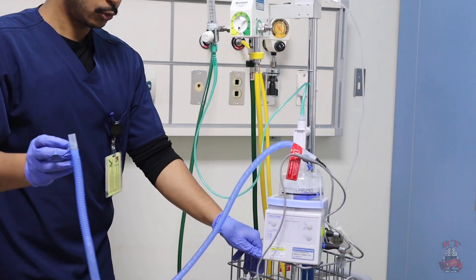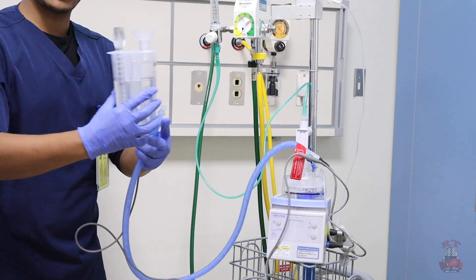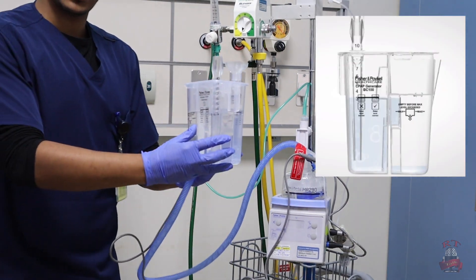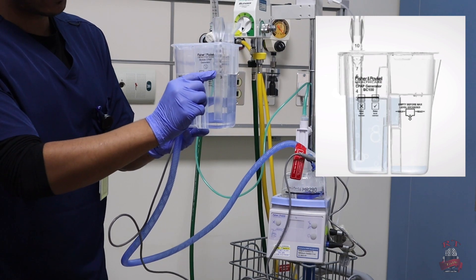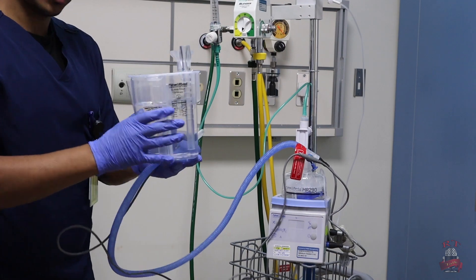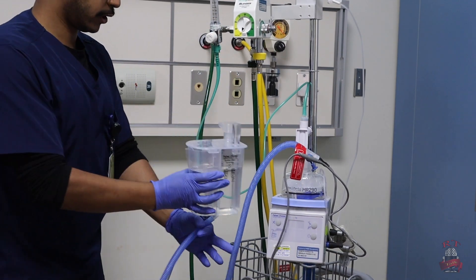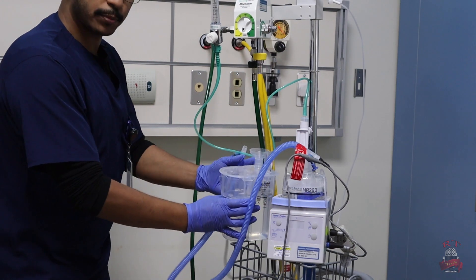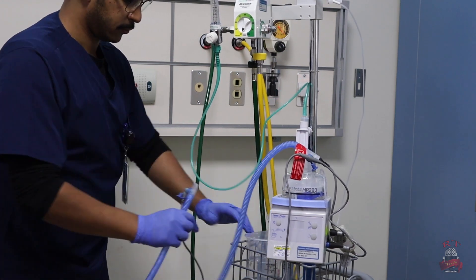After that, we will take our bubble CPAP generator. And we will refill it with the water until the black line or the limit for it. I already put water inside it. We will put it here. And it should be below the patient.